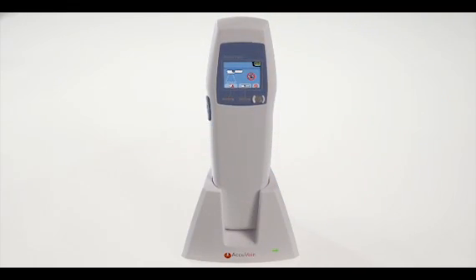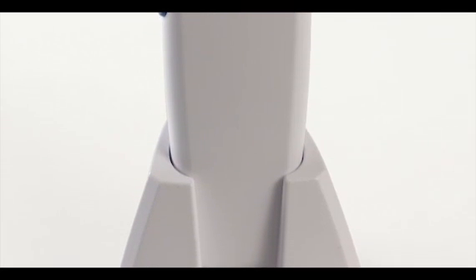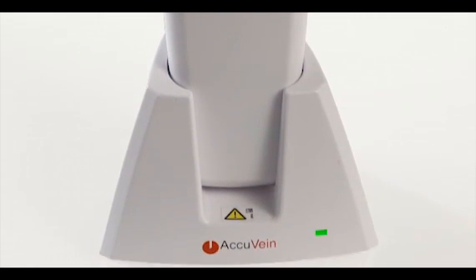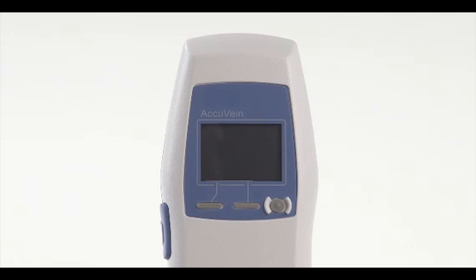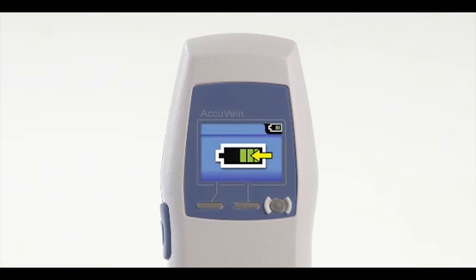When the device is not in use, it is strongly recommended that it be kept in the charging cradle so it is fully charged and ready for use at any time. While the AV400 is in its charging cradle, the battery charge icon will display. It typically takes two to five hours to fully charge the device and there is up to three hours of vein illumination time per charge.